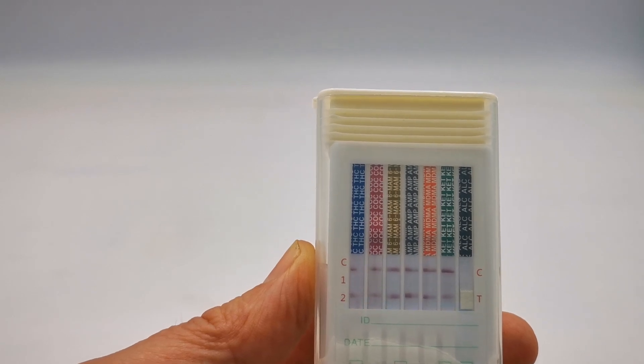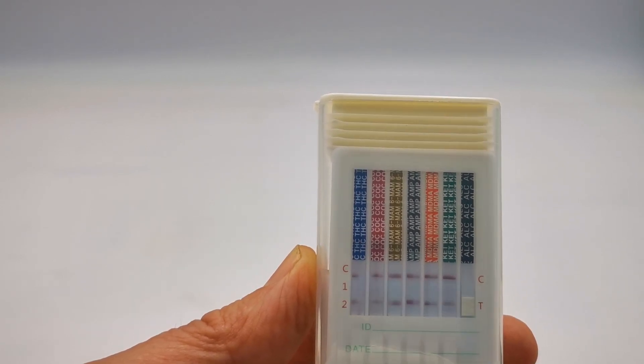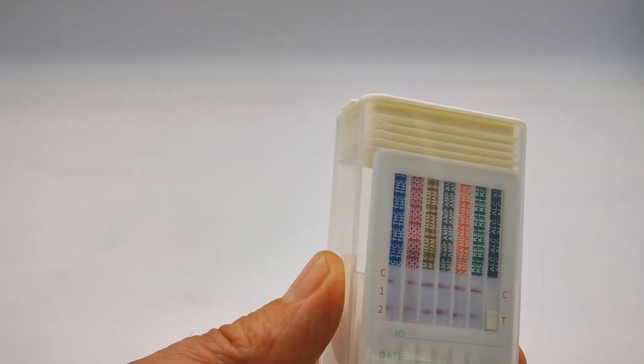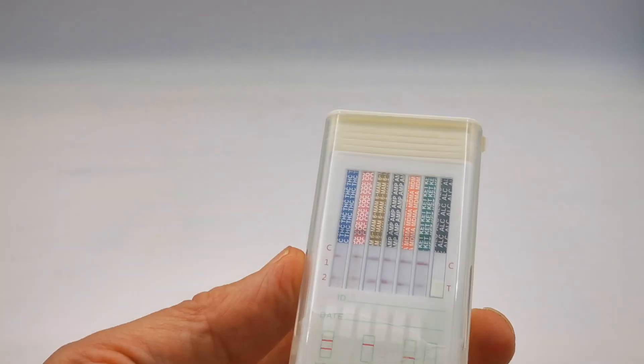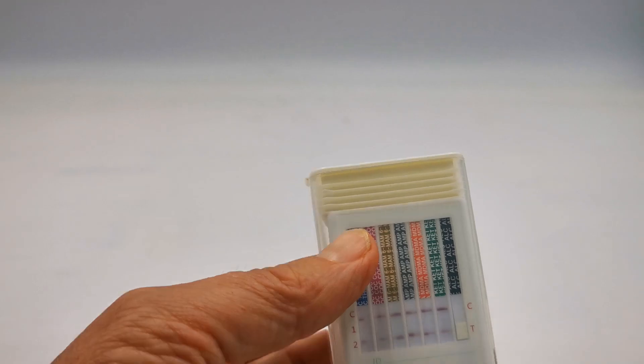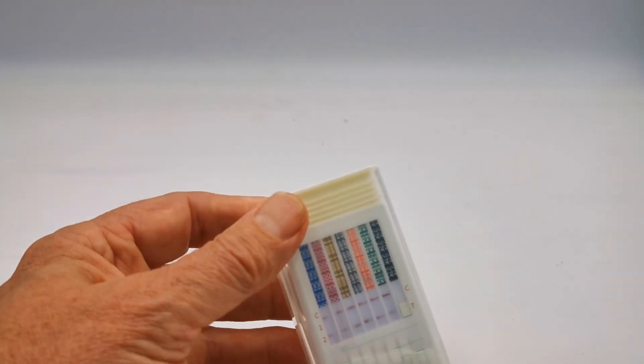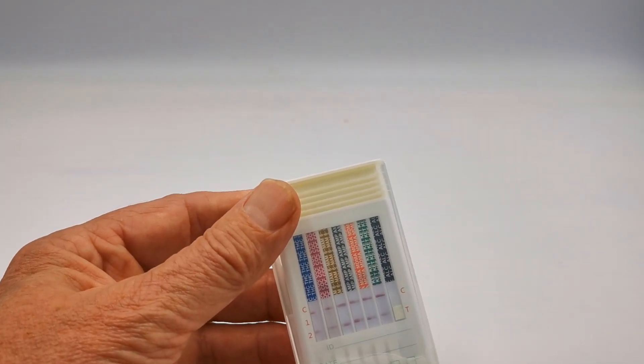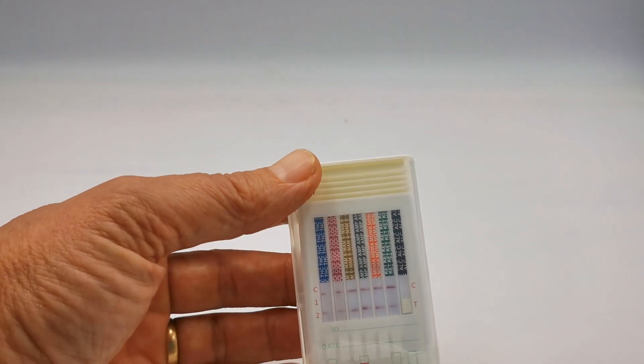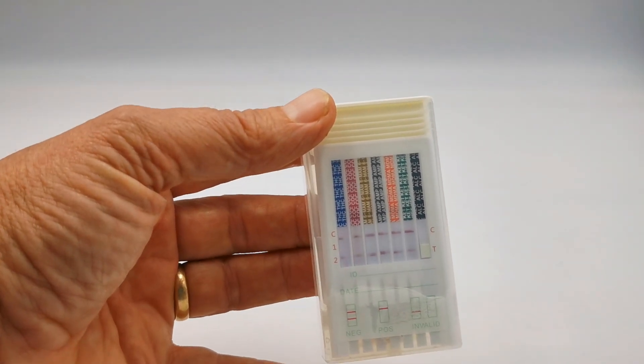So there you have it: six drugs screened plus alcohol in a simple, easy to perform swab cube test. Very easy to use, nice and simple design, easy to dispose of in normal commercial waste, and includes the alcohol test. Very easy and accurate results in the order of between 97 to 99% compared to laboratory tests.